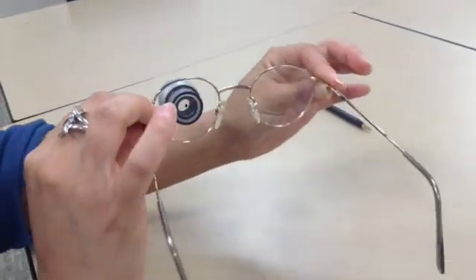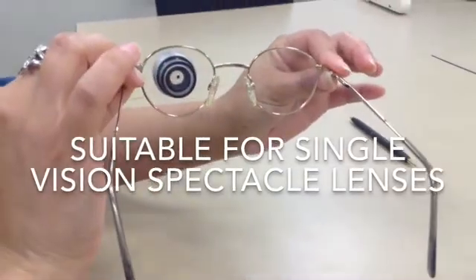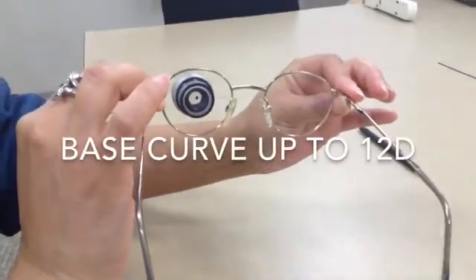The Telescope Mounting Adapter is really suitable for single-vision spectacle lenses with a front plano base curve of up to about 12 diopters.